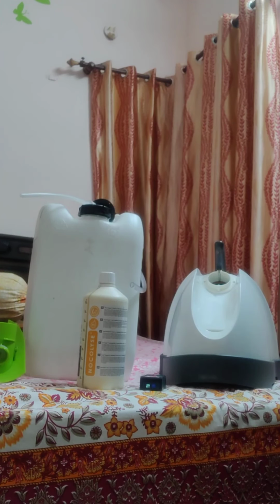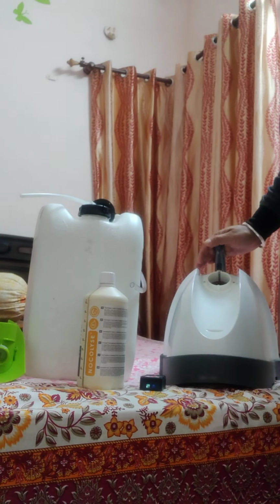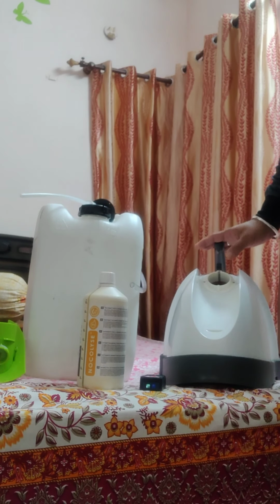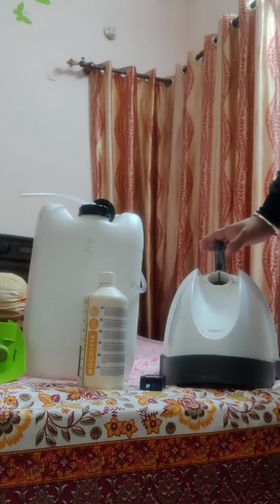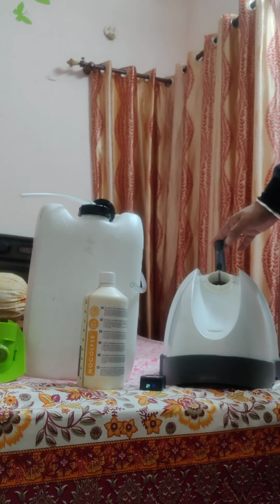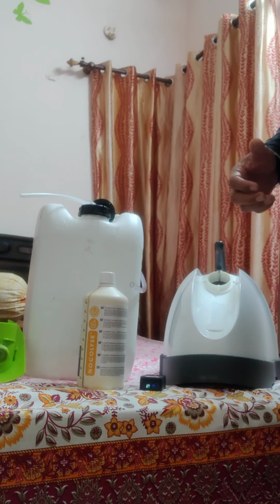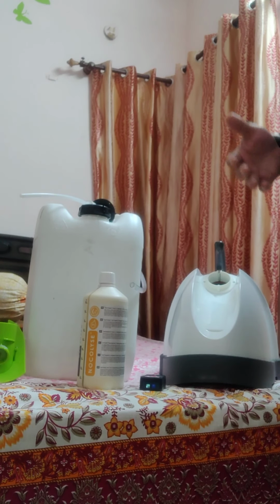Besides this, we have seen when we have been using these machines in the hospitals, the doctors have been telling us that people who are not able to get good sleep, like insomnia, have improved in hospitals.